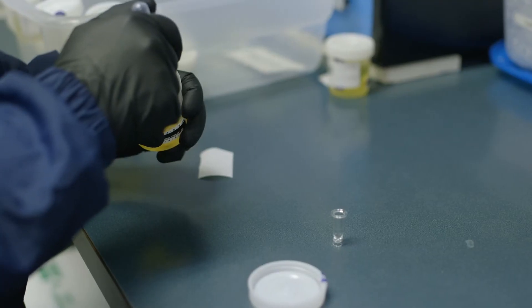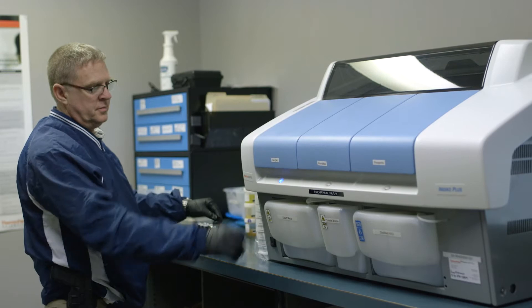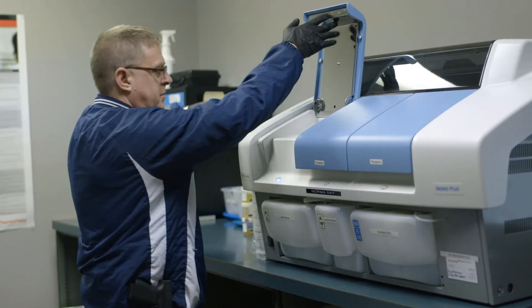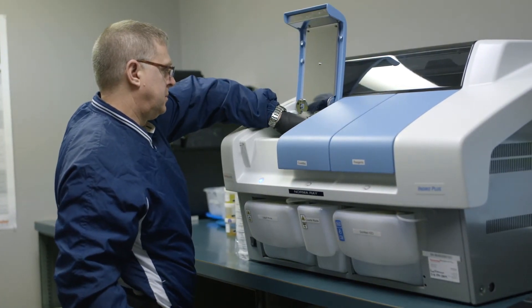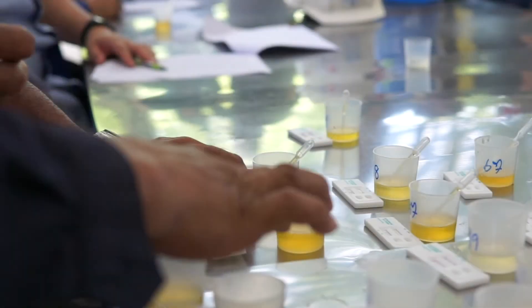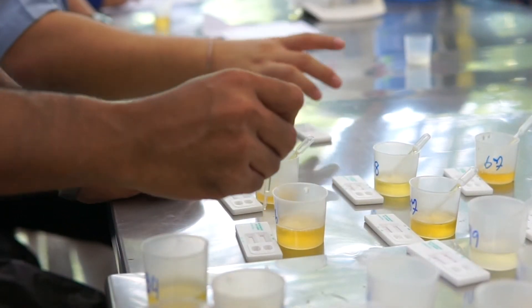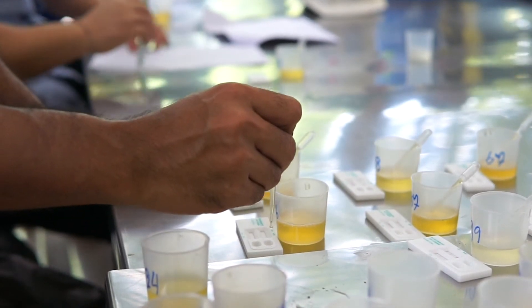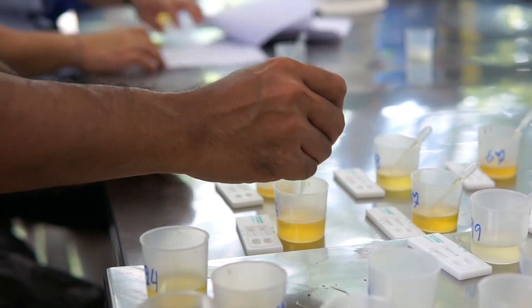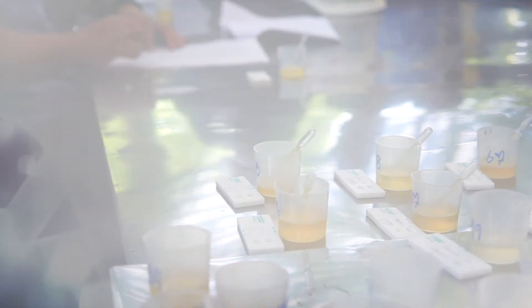Drug testing is a critical element of any drug court program, and accurate, timely results can make a big difference in how effective your program is. Manual testing methods may lead to ambiguous results which can be questioned and will impact participant success, and ultimately the success of a drug court program.